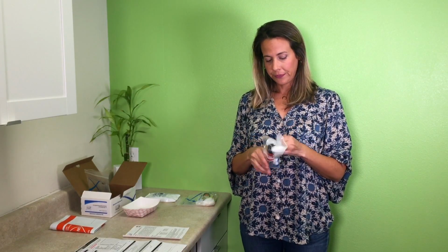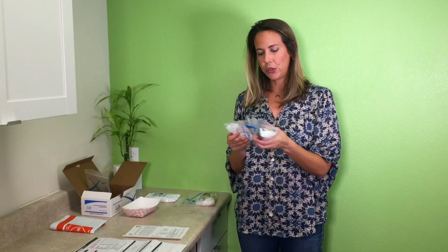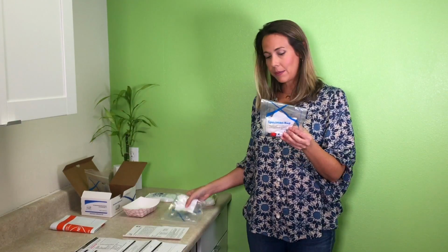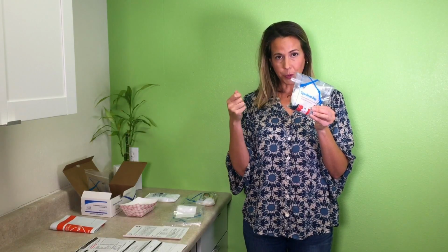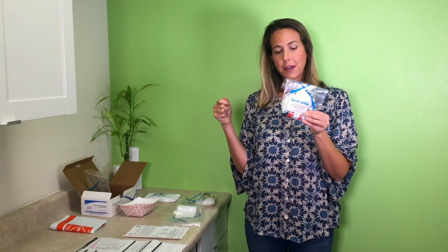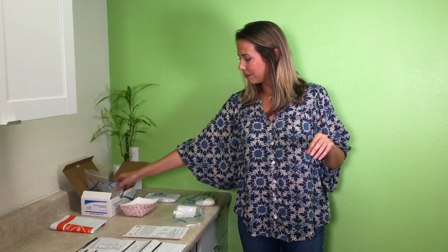Day 2 comes along, time for your second stool sample. Day 2 is going to be bound by a rubber band because it actually has 2 Ziplocs. It has a black capped vial just like day 1. You're going to do the same exact thing. You're going to collect your stool sample in one of the containers, unscrew the black cap, use the spoon provided, take stool from the sample, and put it in the vial. Kind of self-explanatory. Then you're going to shake the vial for 30 seconds, put it back in the Ziploc, and this goes in the box.